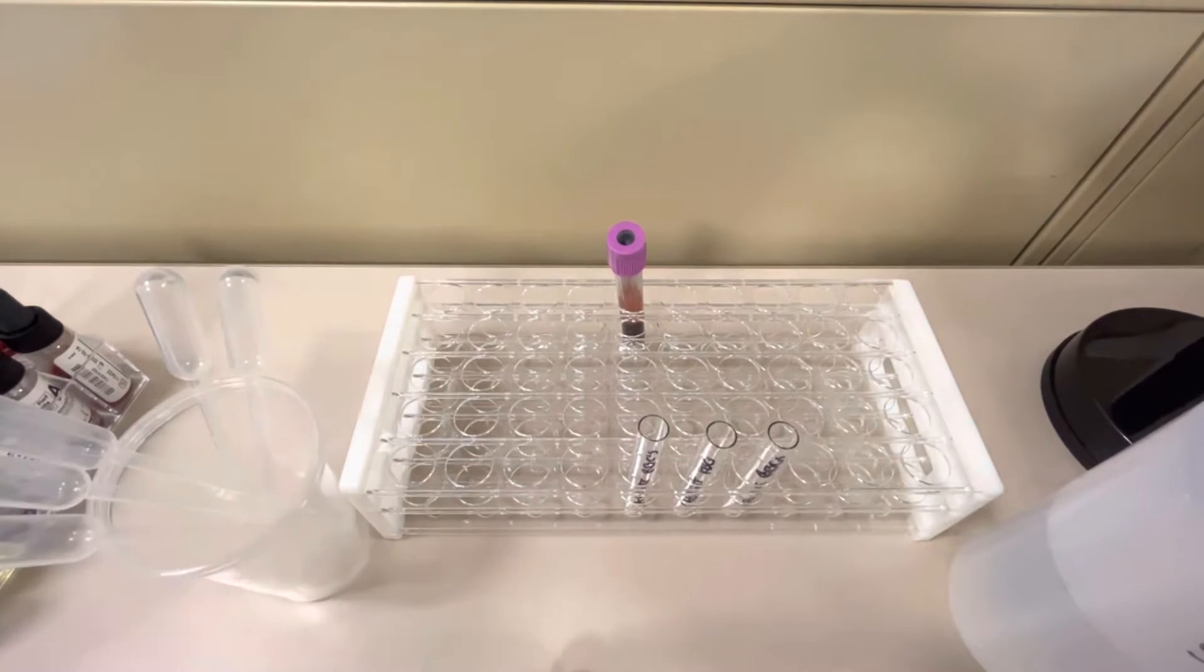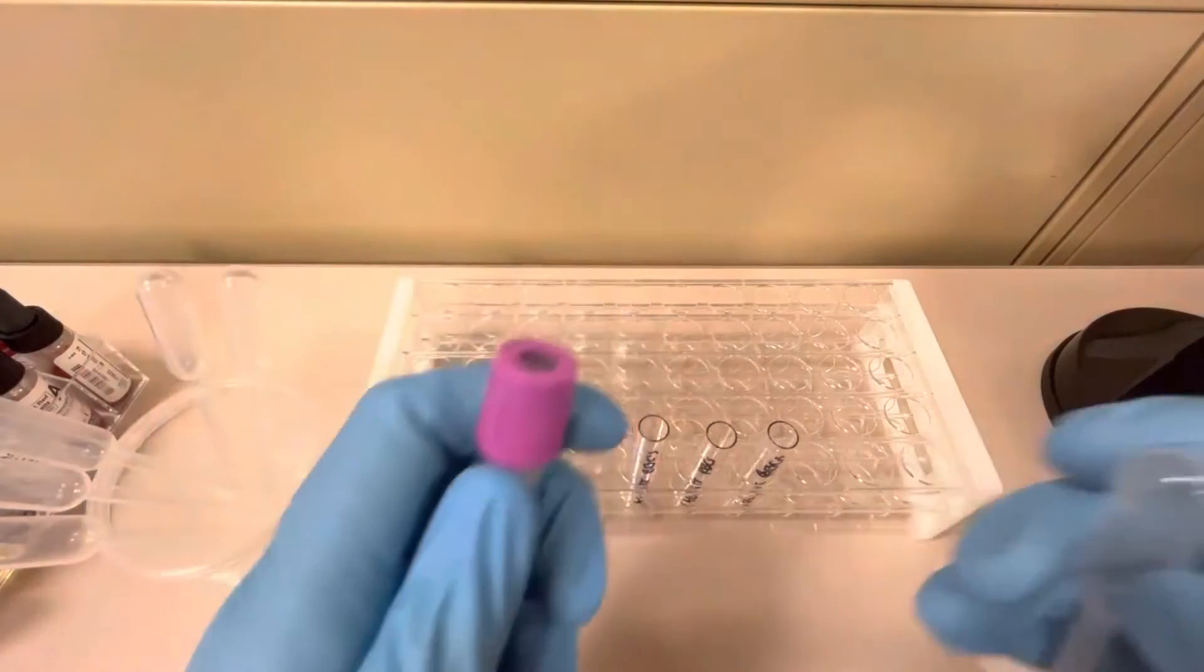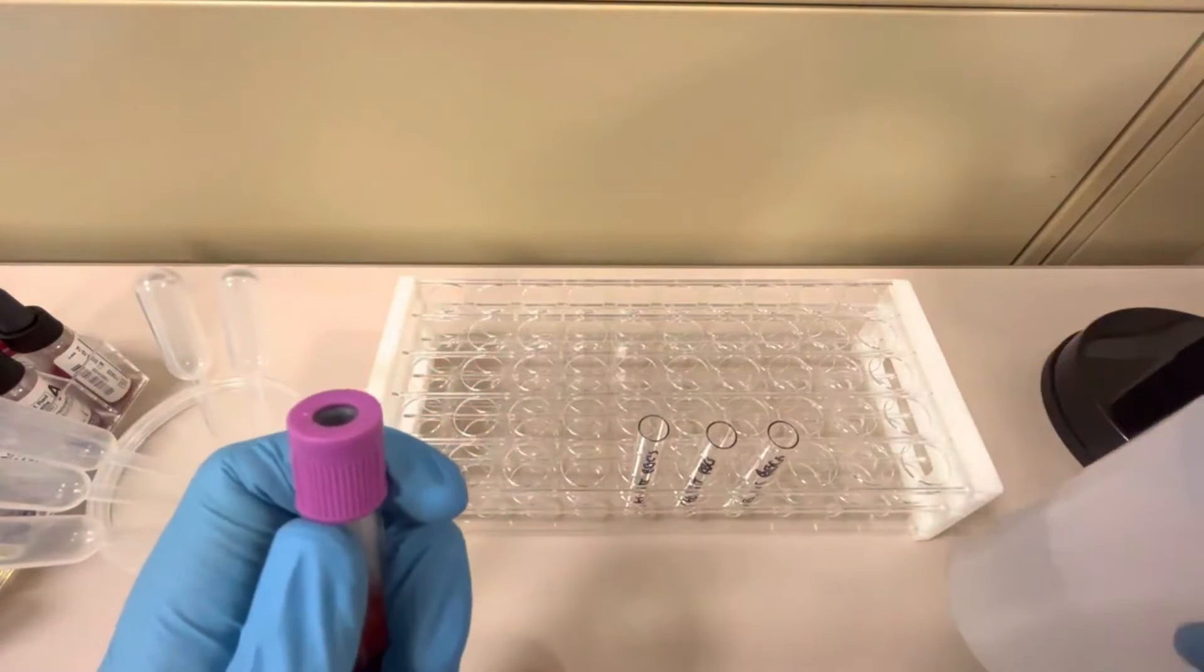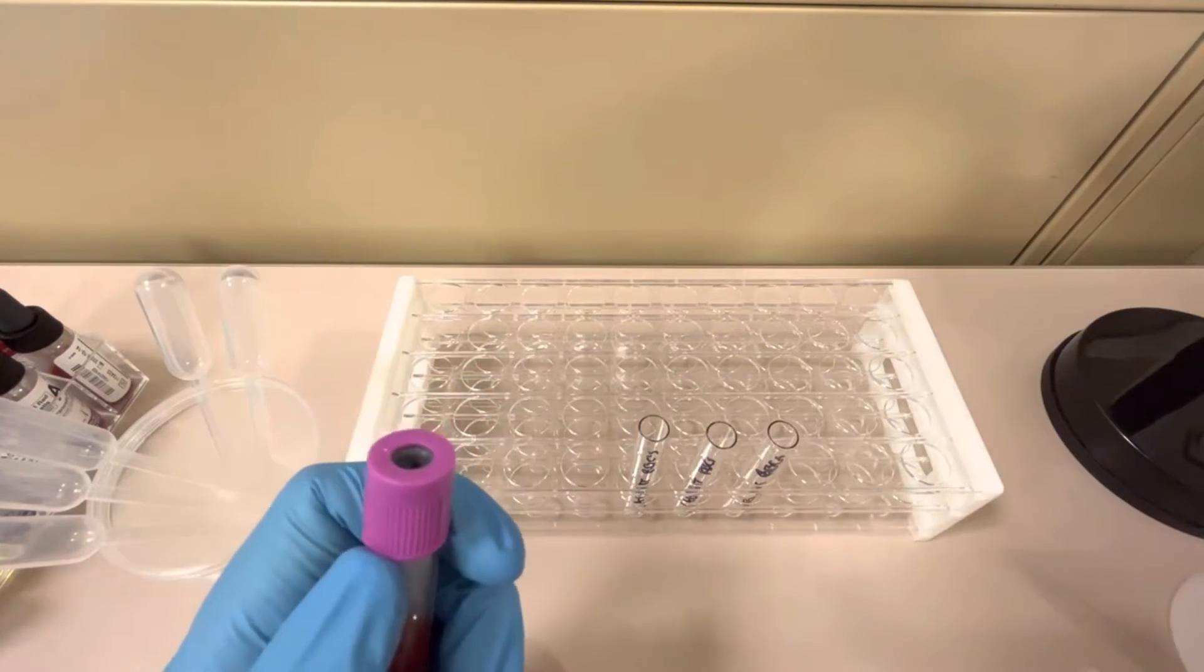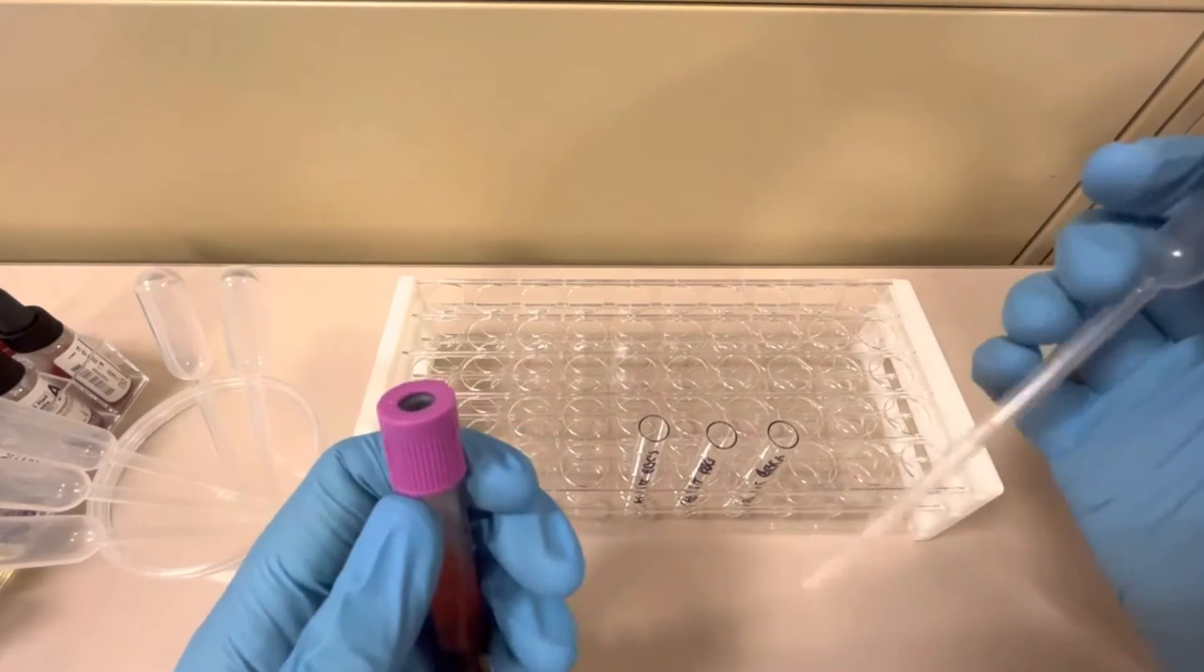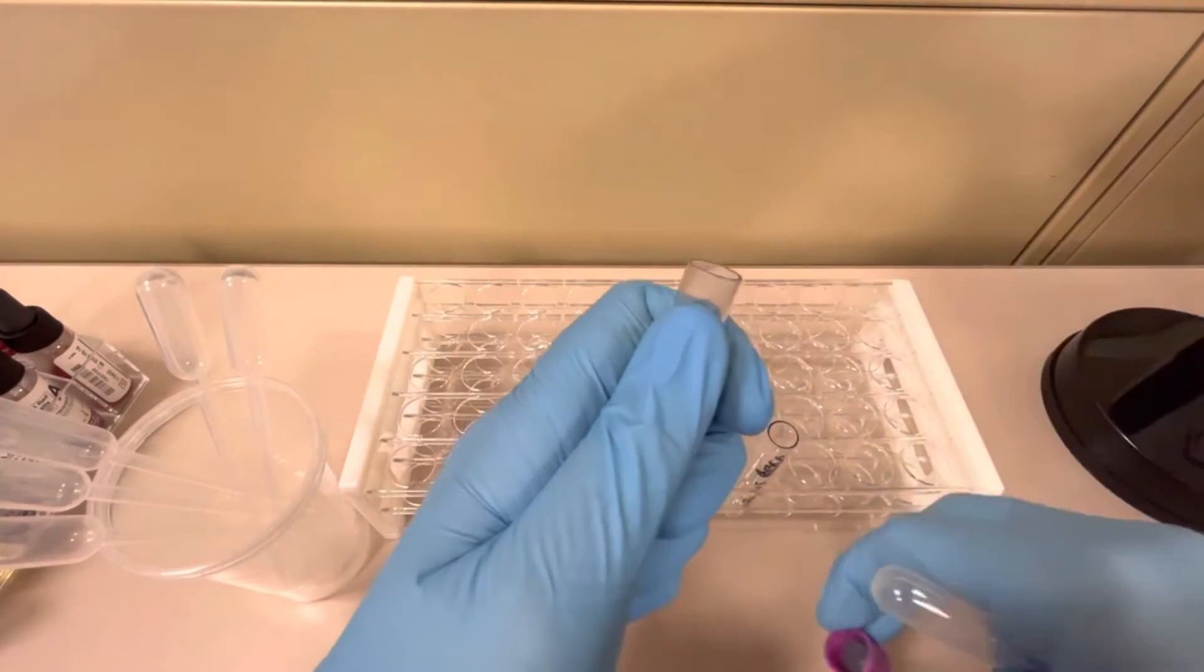So what I want to do first is take a disposable pipette. I'm going to move this blood bank saline out of the way. Trying to do this while filming is a little odd. I'm going to take the cap off of my blood bank tube.